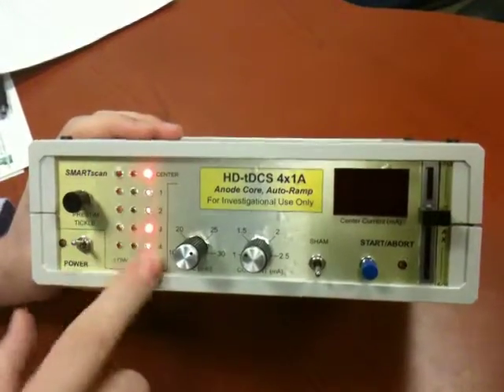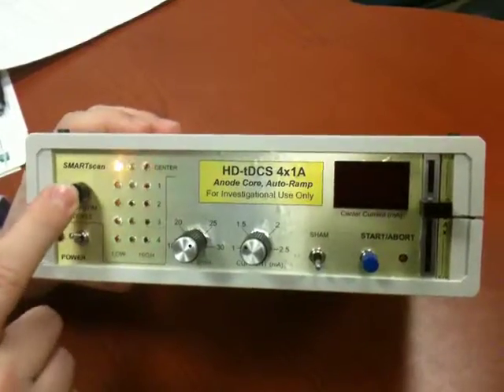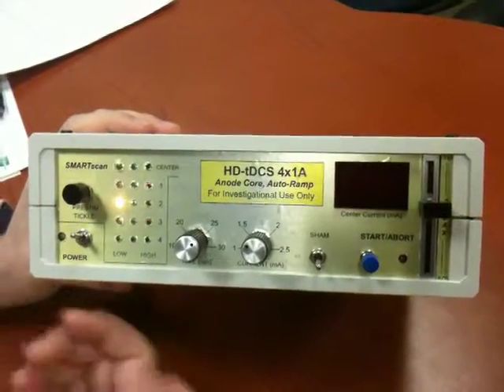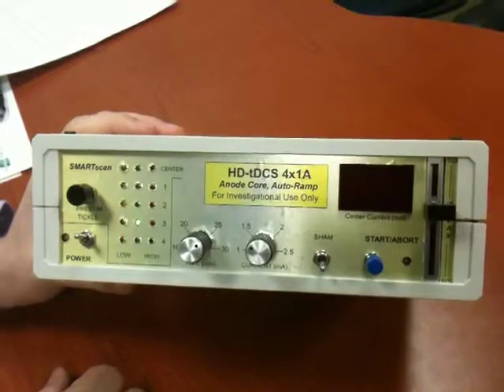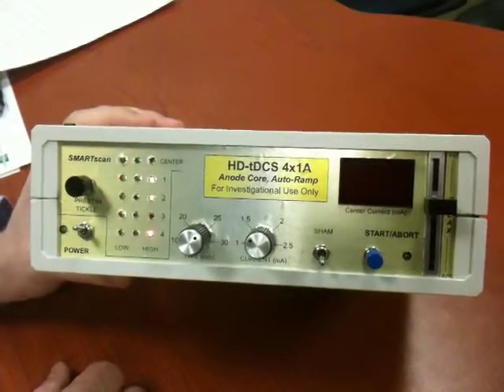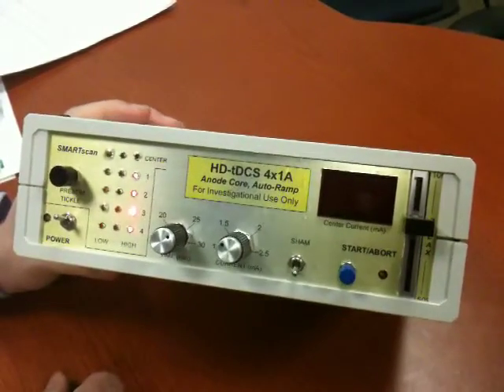It's not plugged in, so they're all red basically. Here's the Pre-Stim Tickle — where if that's engaged, it's a 15-second process, so each light is going on for one second. When it gets to the end, it's finished its Pre-Stim Tickle cycle, and then it's going back to scan mode. Of course, all the electrodes are still disconnected.